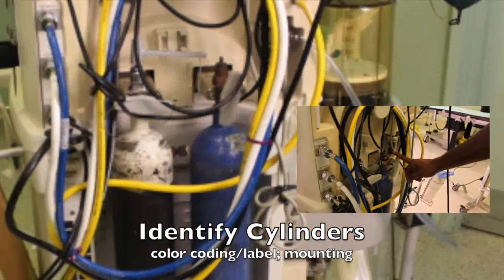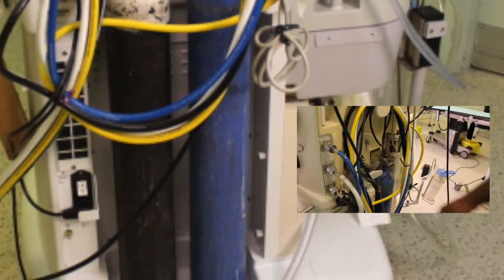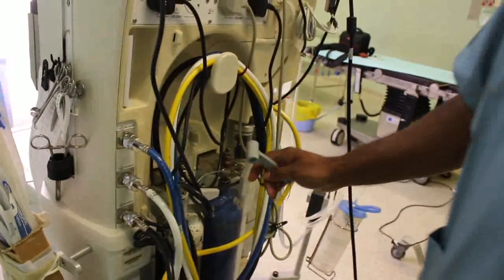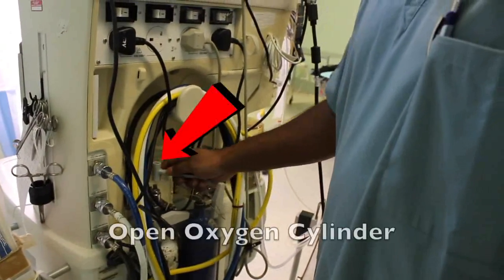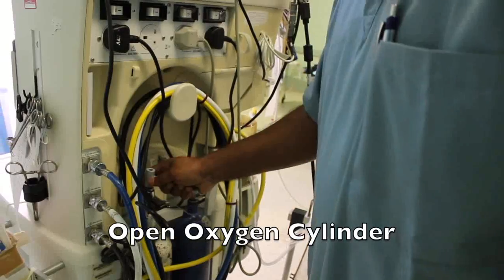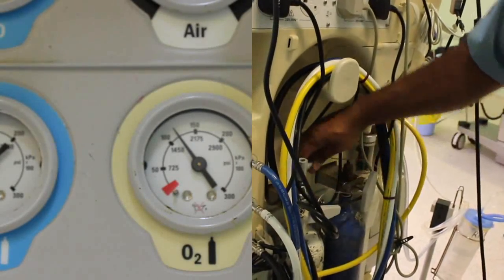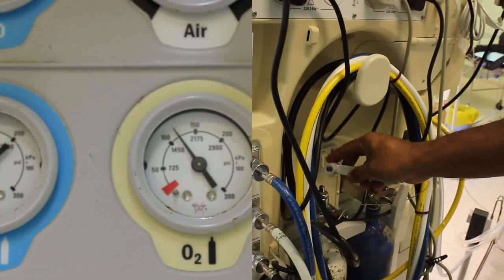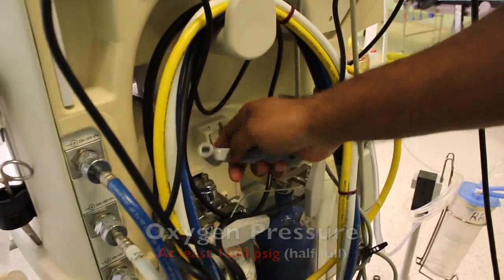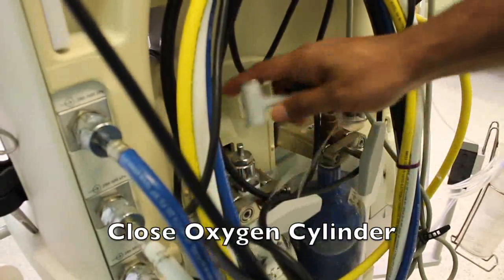Now identify the cylinders by color coding or label and ensure proper mounting. All the cylinders should be in the off position. Regarding the oxygen cylinder, you need to open it and see that the cylinder pressure gauge reads at least half full, or 1000 psig, after opening. After that, keep the oxygen cylinder closed.